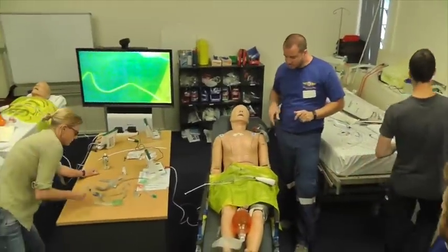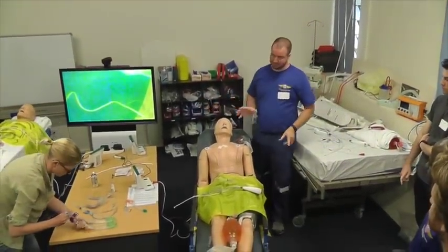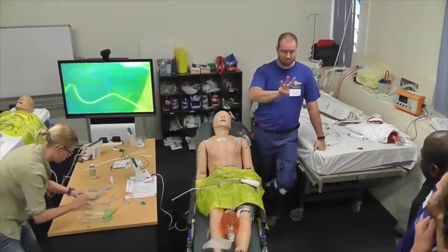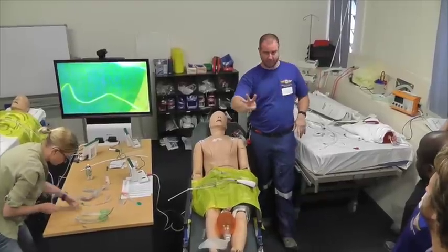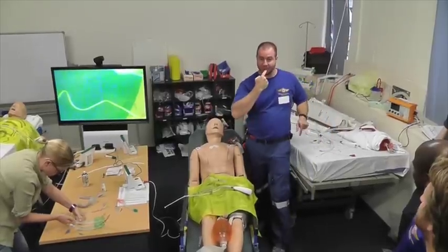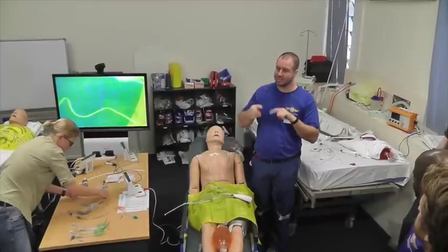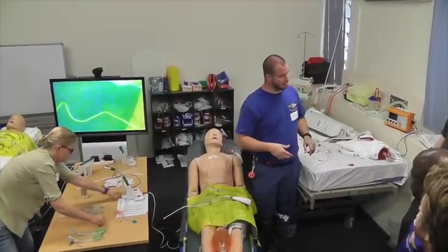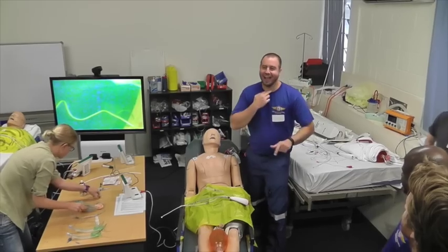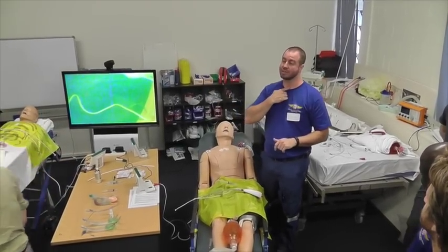Come on in. Okay, so guys, this is the fibre optic intubation session. In our service, there's 3 holes we're going to go through when we're managing someone's airway. What are they? 3 holes. The mouth, okay, so 99.2% of our cases are going to be oral intubations as an RSI. What's next? Nose. The neck is next. Thank you. And that's when we've really gone to pot and we've got to do something about a surgical airway.